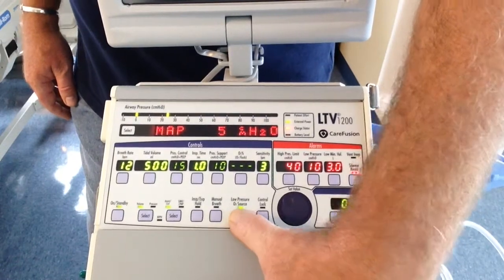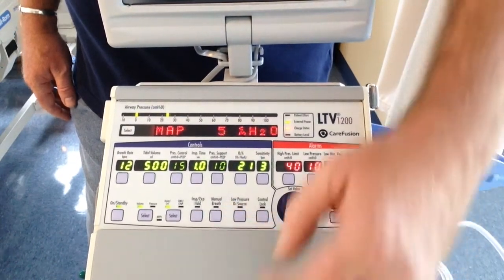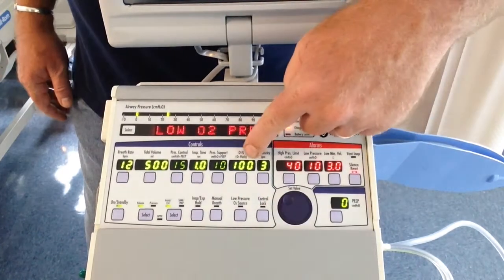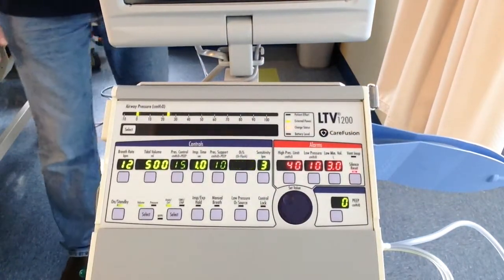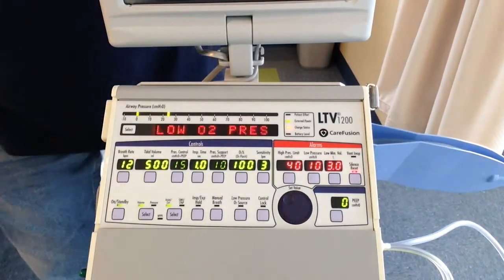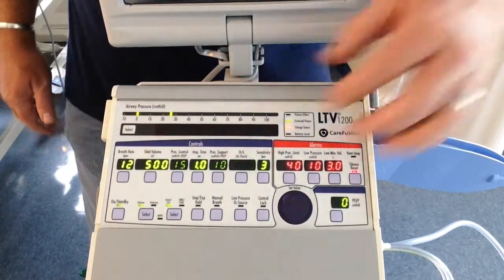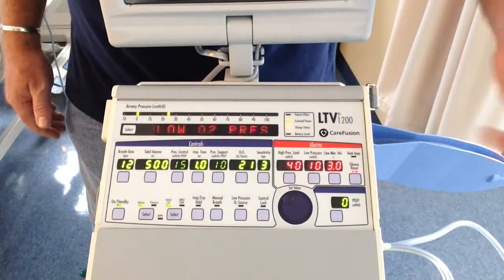Whoop, wrong one. I am doing this up here, upside down. You press and hold the O2. See how it turned to 100%? That means that O2 flush, it'll give me 2 minutes of 100% oxygen for when I suction the patient. You want to alarm silence when you suction anyway, so I've suctioned. This is only reading because I am not hooked up to any oxygen. You can wait for 2 minutes and it'll turn off, or press it and it turns off.